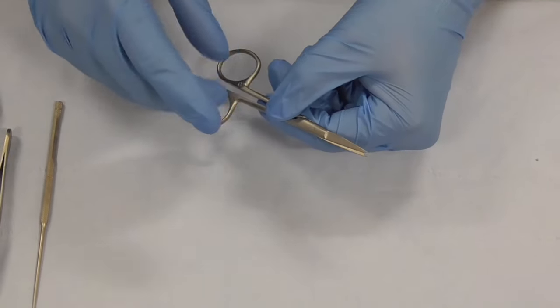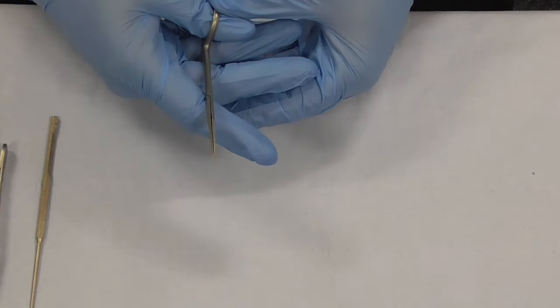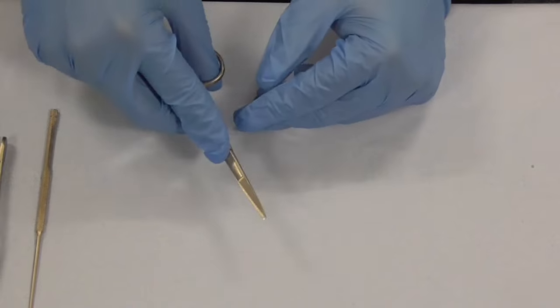That's a word on holding needle holders and sutures, don't hold it too tight, don't hold it too far up your digits, hold it in a relaxed fashion.